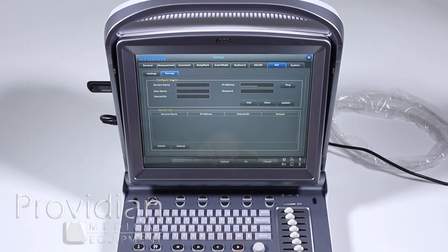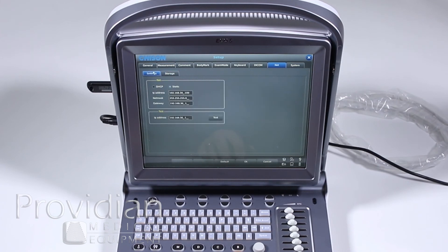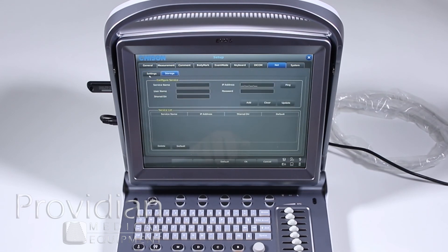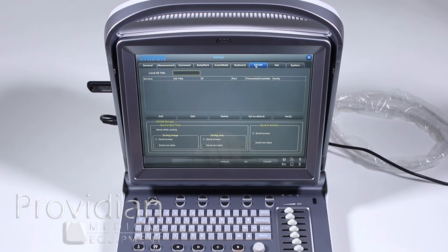Storage is for network storage on a shared directory so you can save images on the network, which is not the same as DICOM. It is for network storage only. And then once this is set up, these are the settings you want if you want to store on DICOM. Don't worry about this storage part. You want to do this to make sure you're on a network. And now you set up your DICOM server.